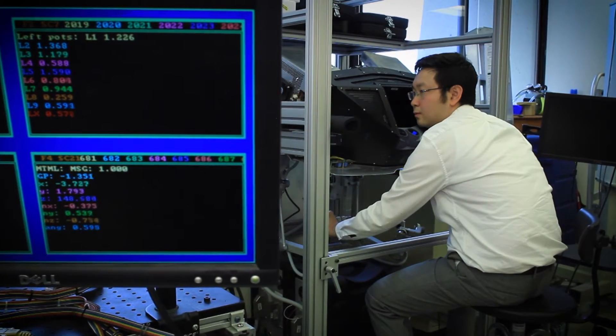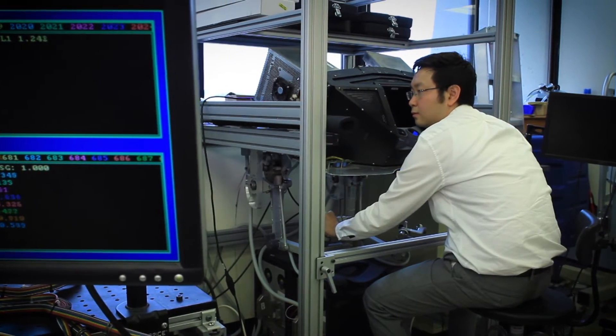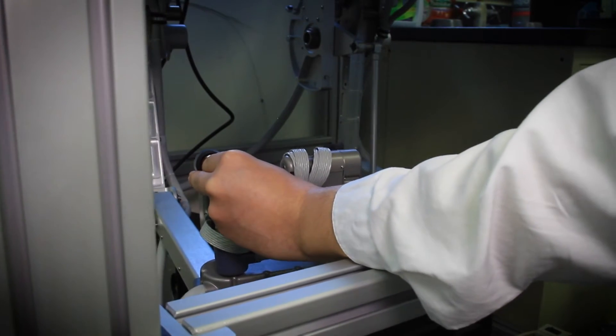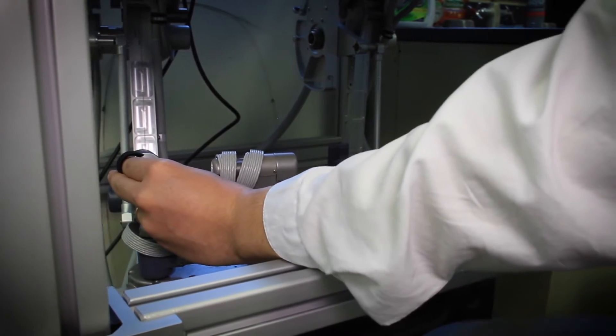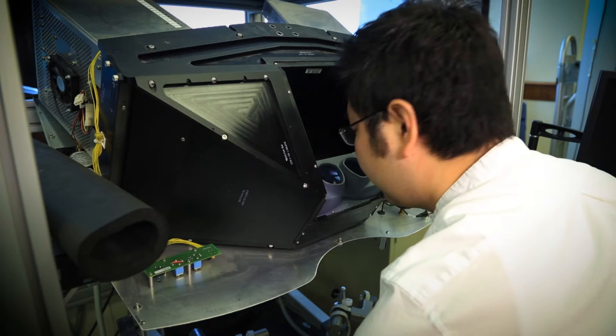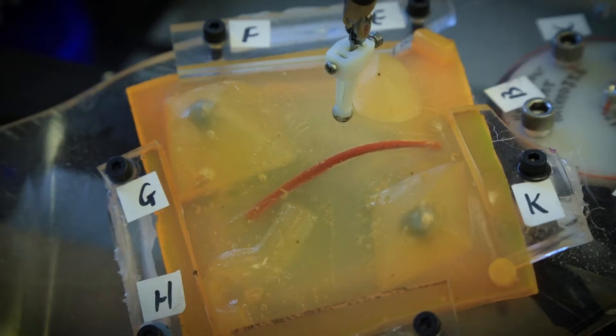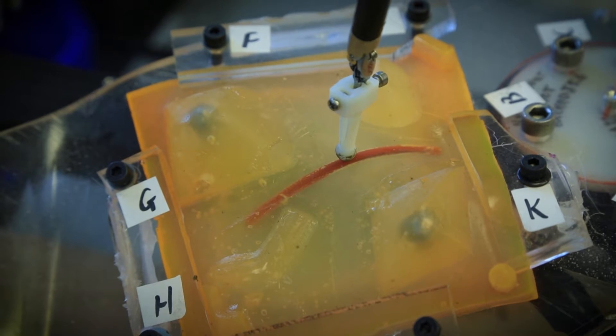What we're trying to do is go beyond the manipulation assistance into a process where the robot itself is helping you understand what the task is and is helping you achieve the task, partnering with the surgeon. It's actually better to leave some of the tasks, for example, of regulating the force on the tissue to the robot controller than having the human worry about it.